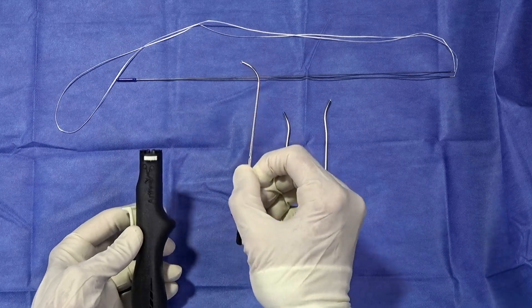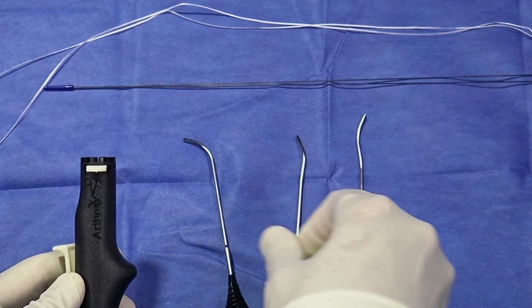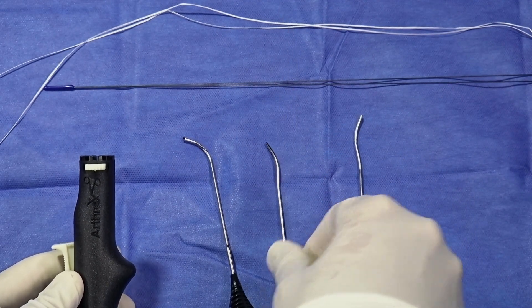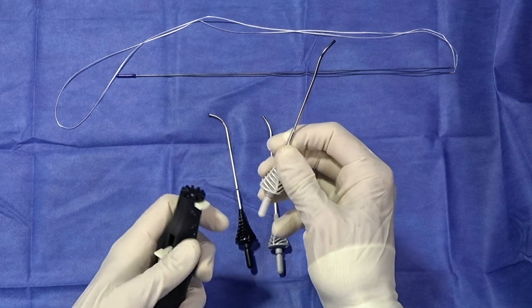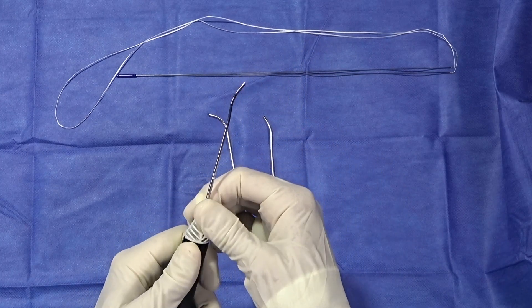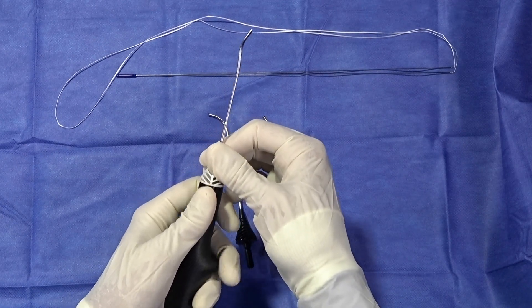There are attachments which allow for repair of the most anterior tears, and then mid-zone and posterior horn both left and right. These are easily attached to the device and can be maneuvered and twisted according to the proper orientation of your tear.